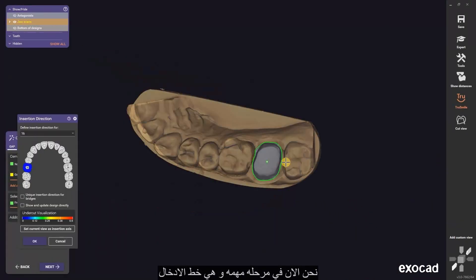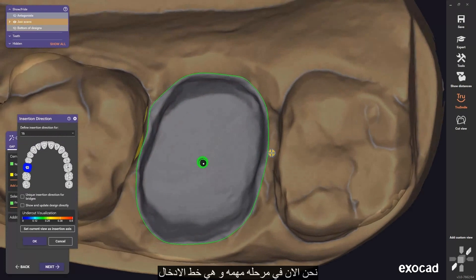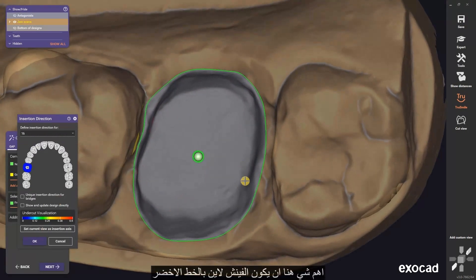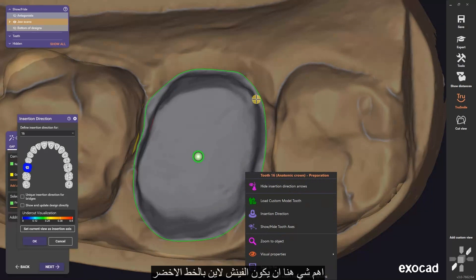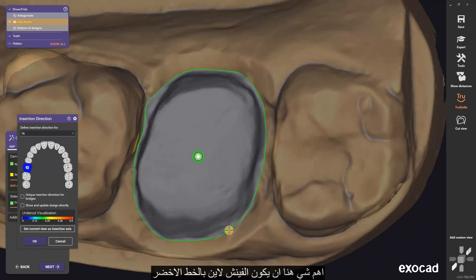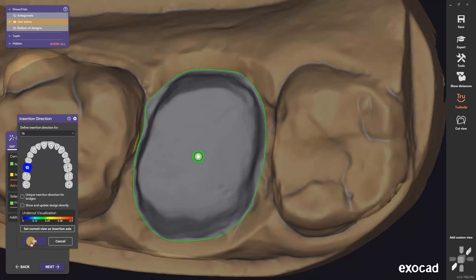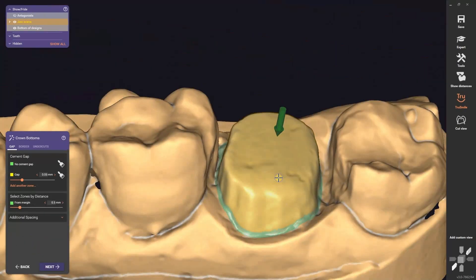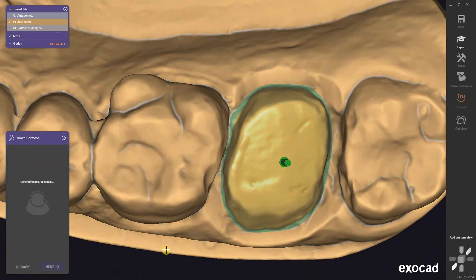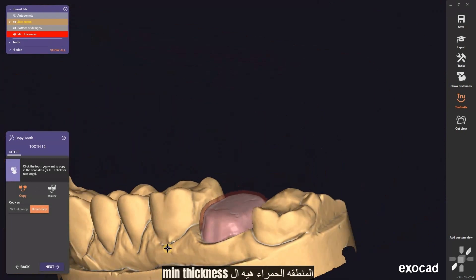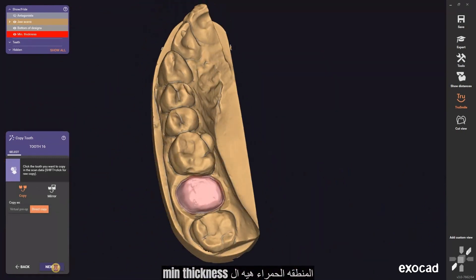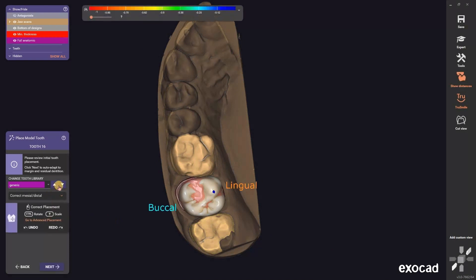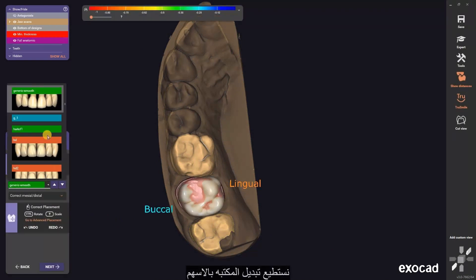We are now on an important part — the insertion of the crown. The important thing here is that we want all the finish line in green color. The red zone indicates the minimum thickness. We can switch the library using the arrows.